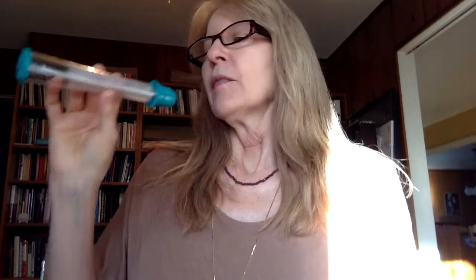I'm going to shake this down again, because you want to do three tries and take your personal best out of three. Biggest breath in ever — open wide, hard and fast — and I did 320. So 320 is my personal best.